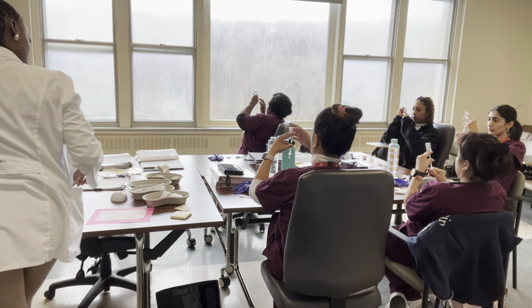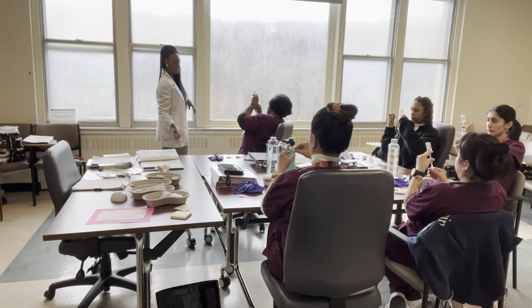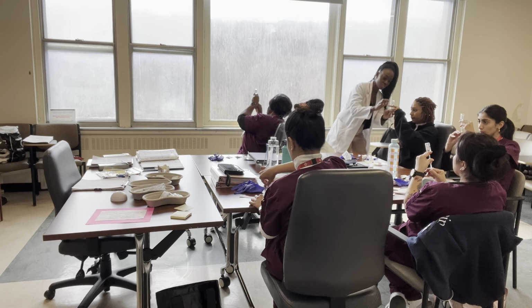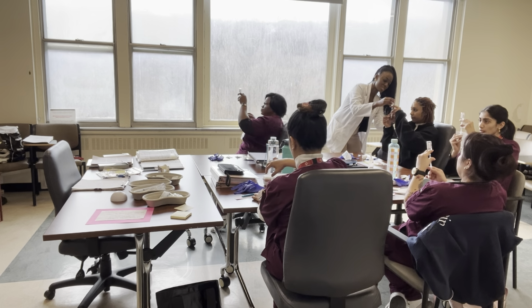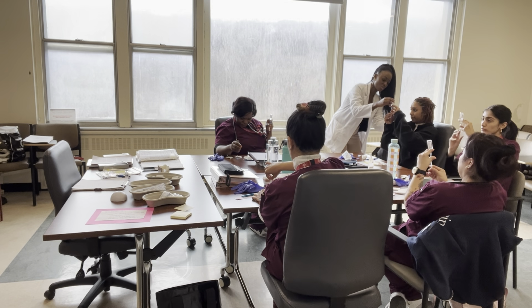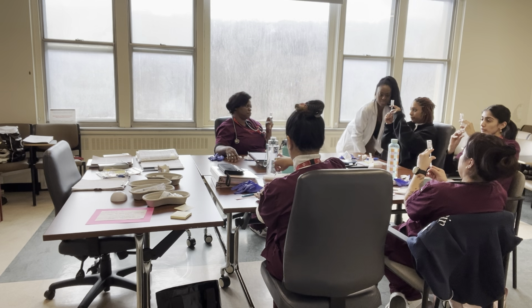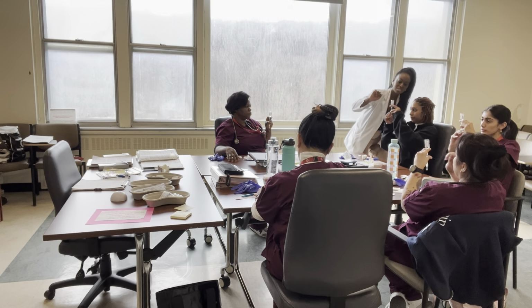So now you'll put the cap on. Want to see how you take it out? Yeah. Good. So your fingers, just to help you, bring your fingers a bit back, and then relax your fingers and make them into a C. Use that to hold and bring your fingers down. It should feel like a C and be less tense. And then you kind of pull down. Is it better? Okay.